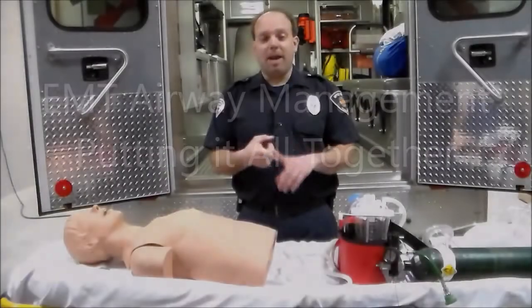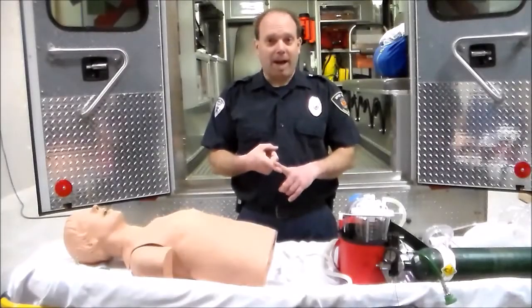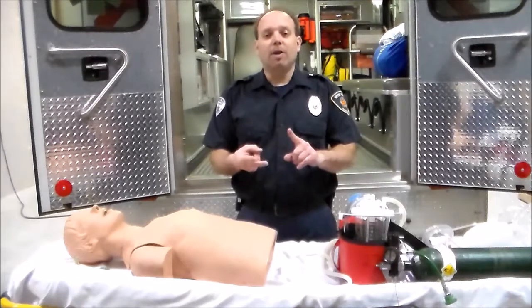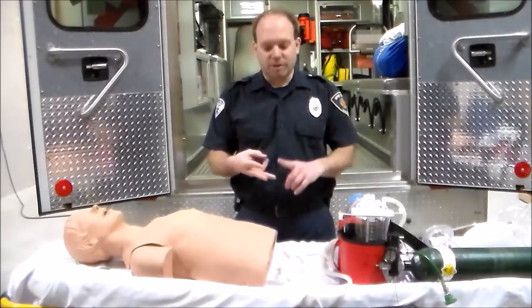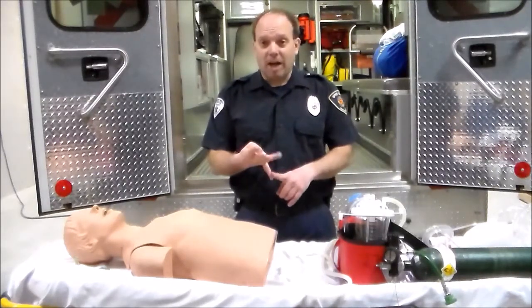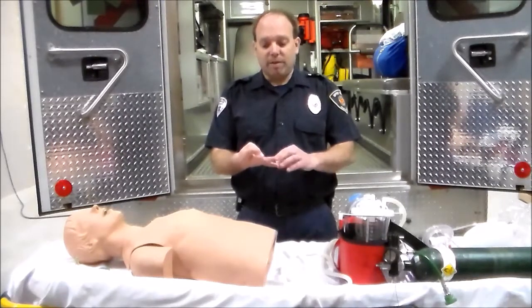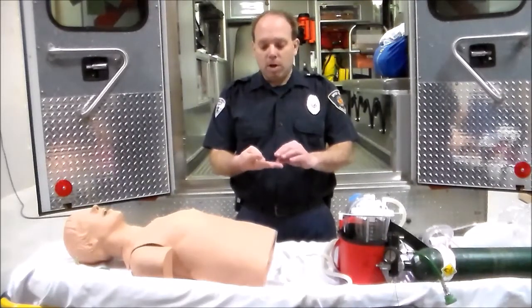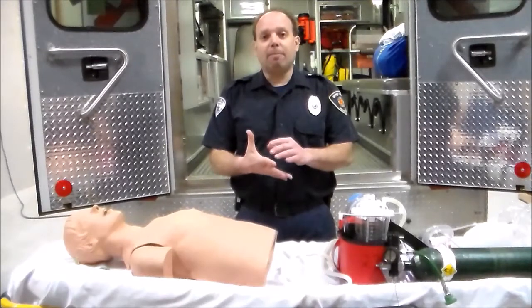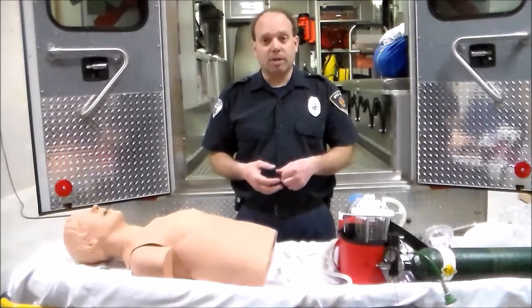We have covered the basics of opening up an airway with a head tilt chin lift, we've done jaw thrust, we've done modified jaw thrust, we placed oxygen tanks together, we put the regulator on them, and we've identified what an E and D cylinder are. We have placed oral and nasopharyngeal airways in our patient.